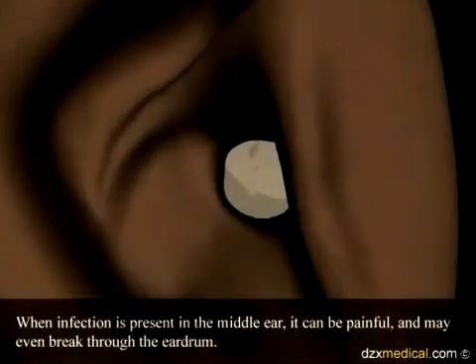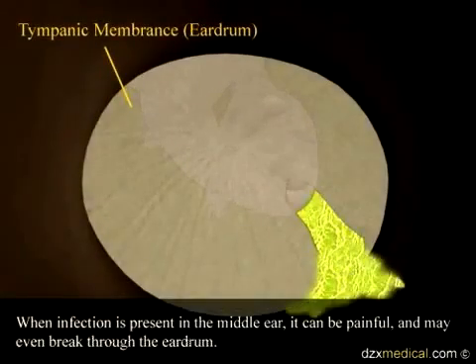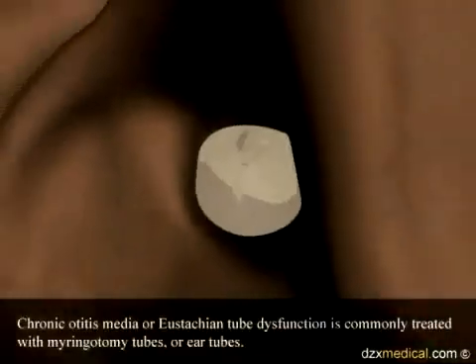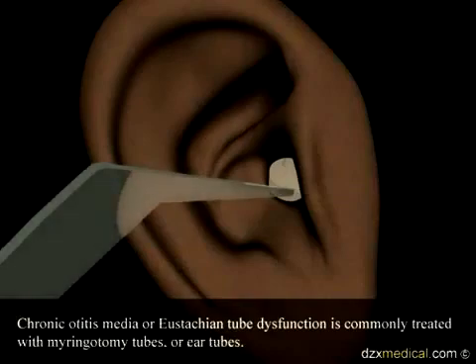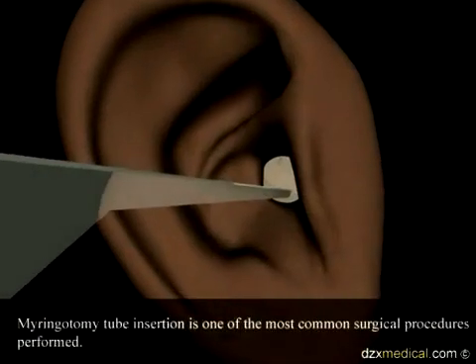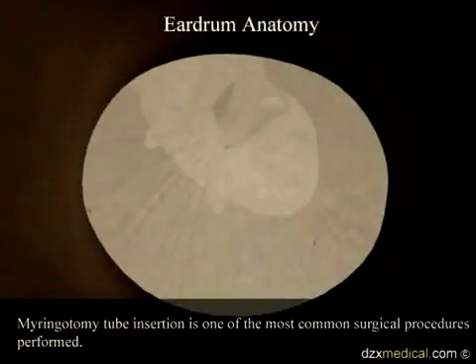When infection is present in the middle ear, it can be painful and may even break through the eardrum. Chronic otitis media or eustachian tube dysfunction is commonly treated with myringotomy tubes, or ear tubes. Myringotomy tube insertion is one of the most common surgical procedures performed.